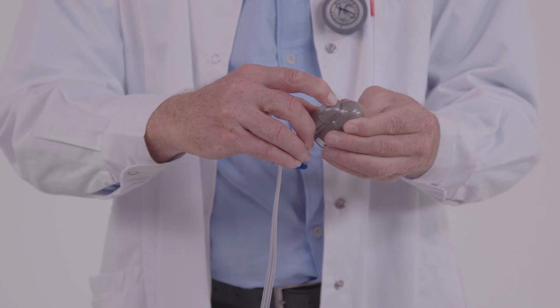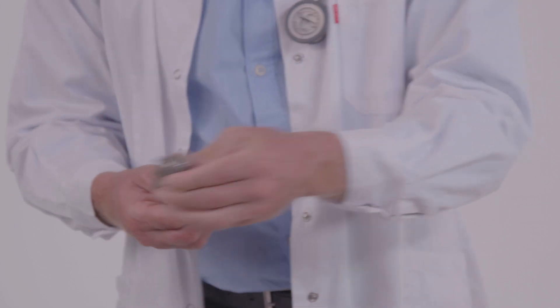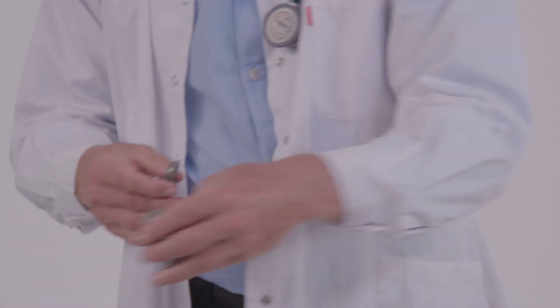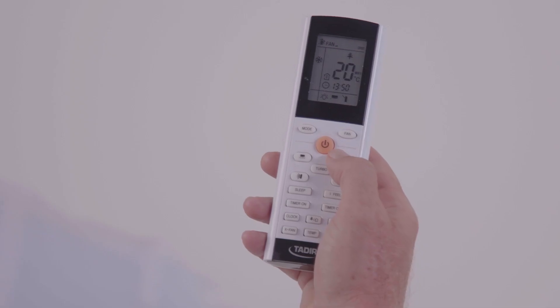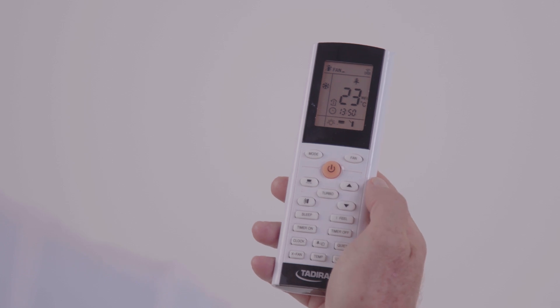Connect a new set of probes. Room temperature must be set to 21 to 24 degrees Celsius, or 70 to 75 Fahrenheit. Dim down the lights and make sure no harsh light is on.